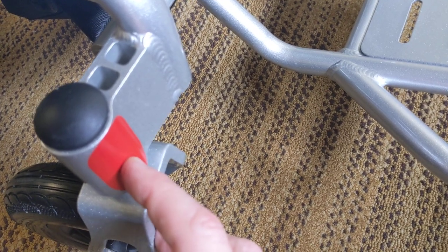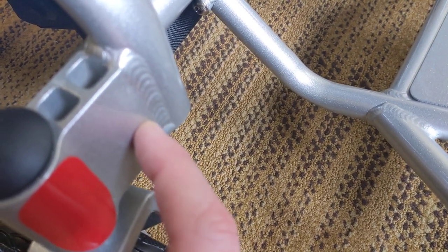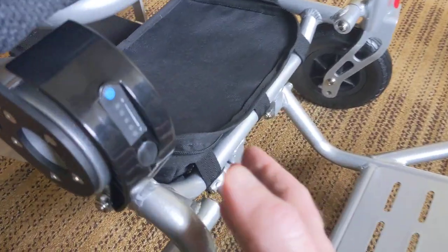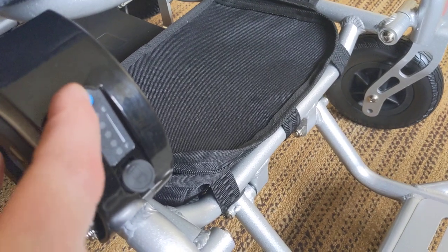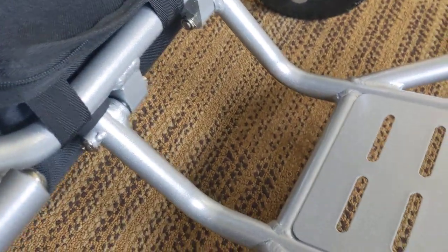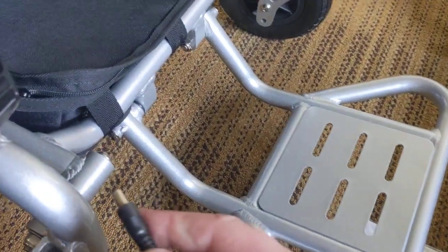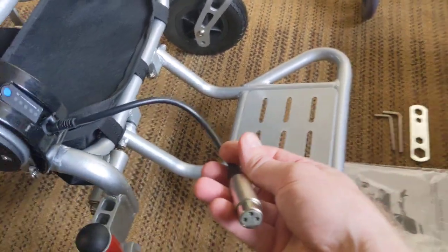We have the reflective material on the front casters, and again, the weld quality here is very high. Heavy-duty front casters. We have a leg extension kit that you can put into the chair — fully adjustable, and I've made several videos on that. We also have the ability to charge the batteries outside of the chair or charge them in the chair. Each battery itself has a reader that tells you how full it is. Part of the attachments we have given you is what's called a pigtail attachment, and that connects directly to your charger to charge individual batteries outside of the chair.